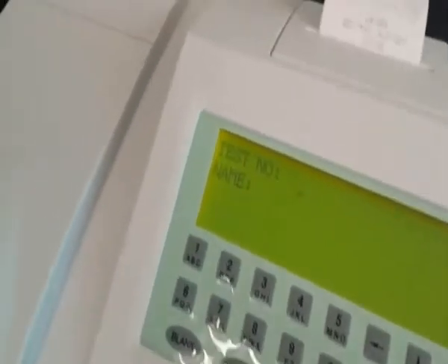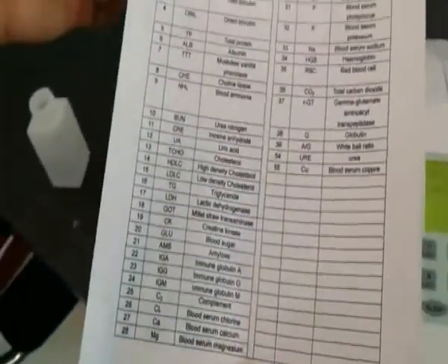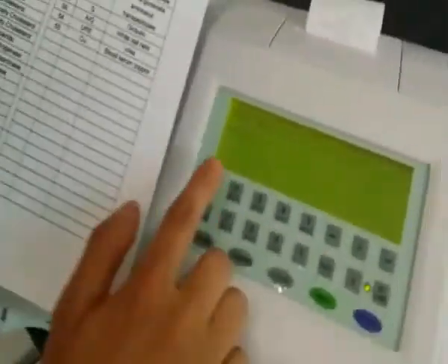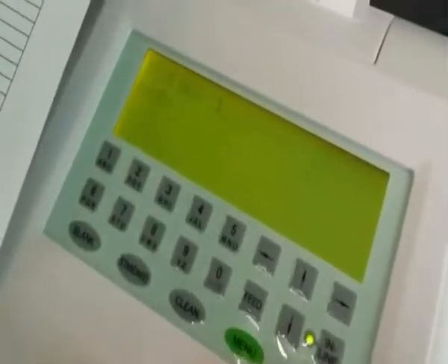First, we should choose collected test item number. For example, we choose 1, then ALT. Here you should pay attention to the factor.